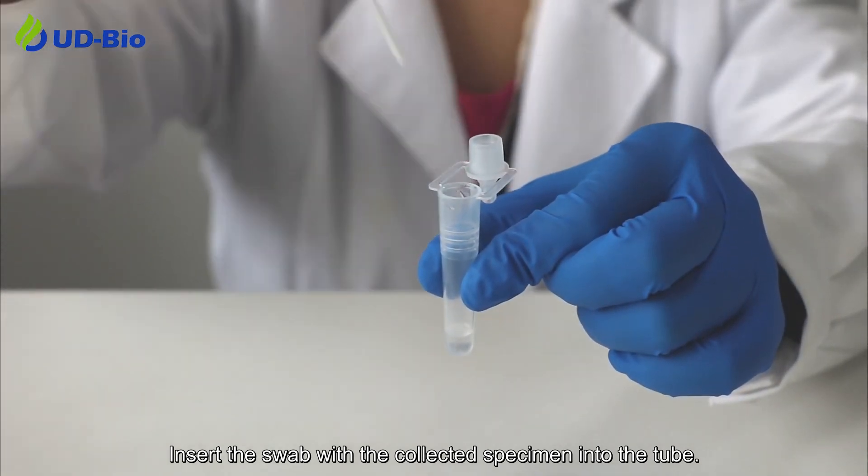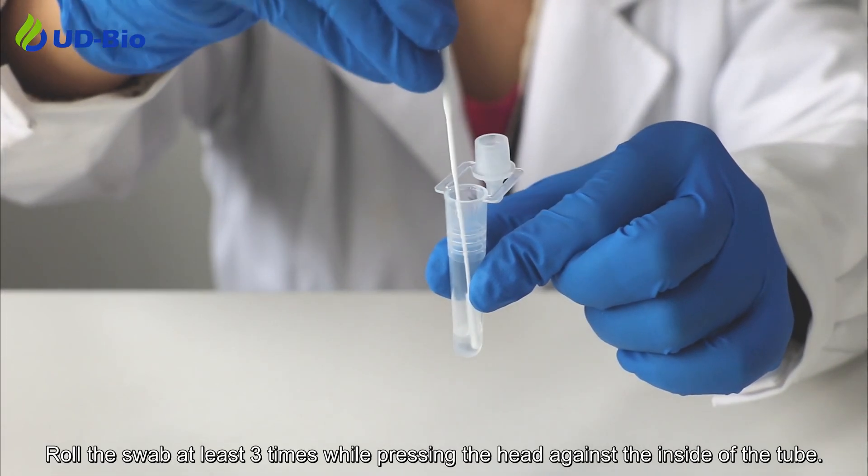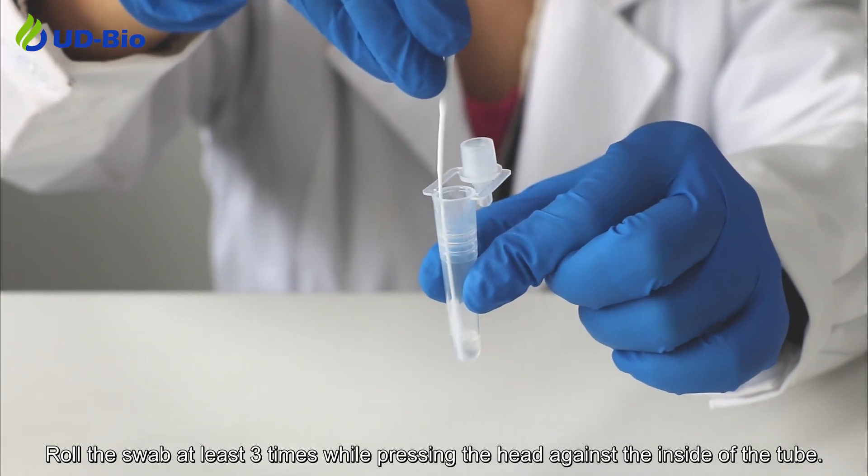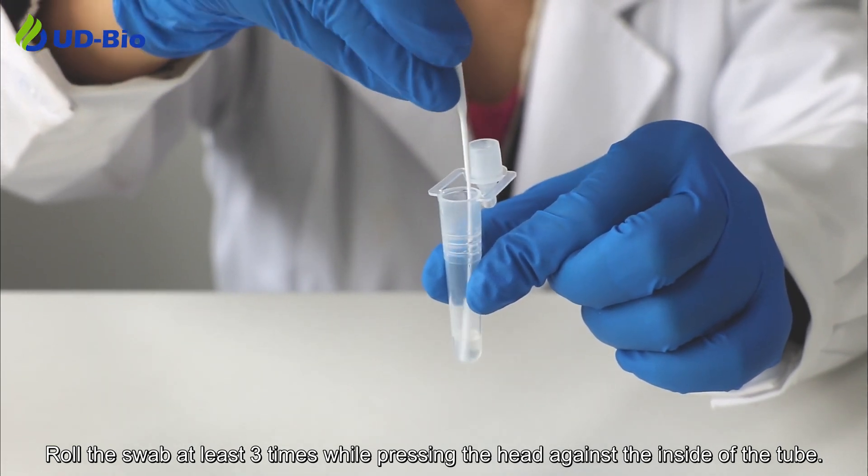Insert the swab with the collected specimen into the tube. Roll the swab at least 3 times while pressing the head against the inside of the tube.